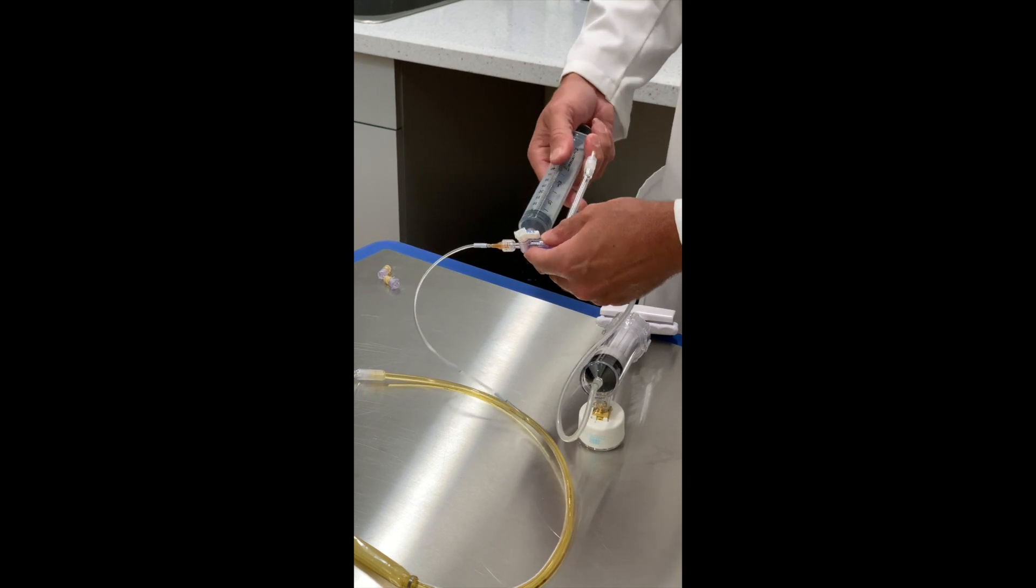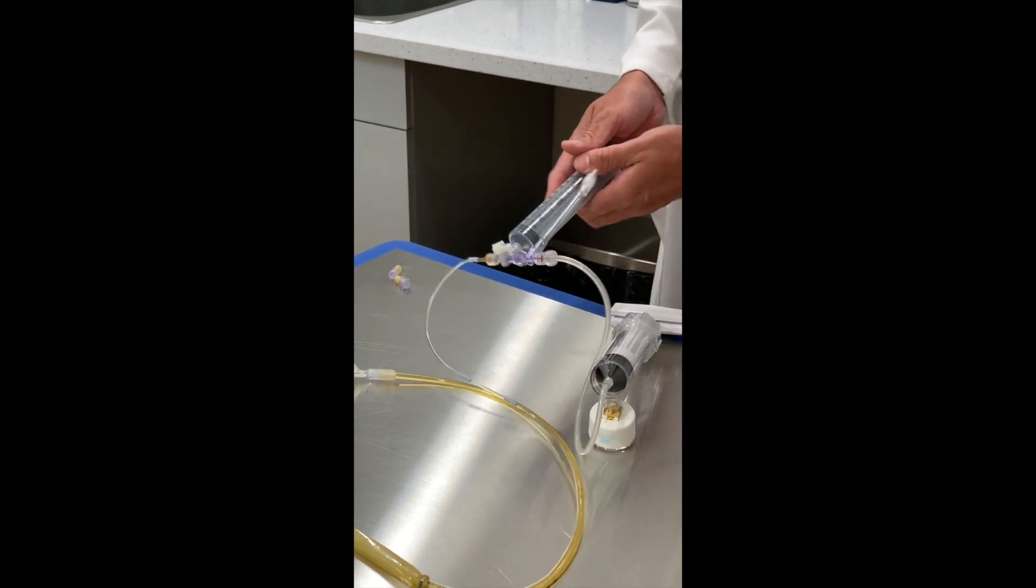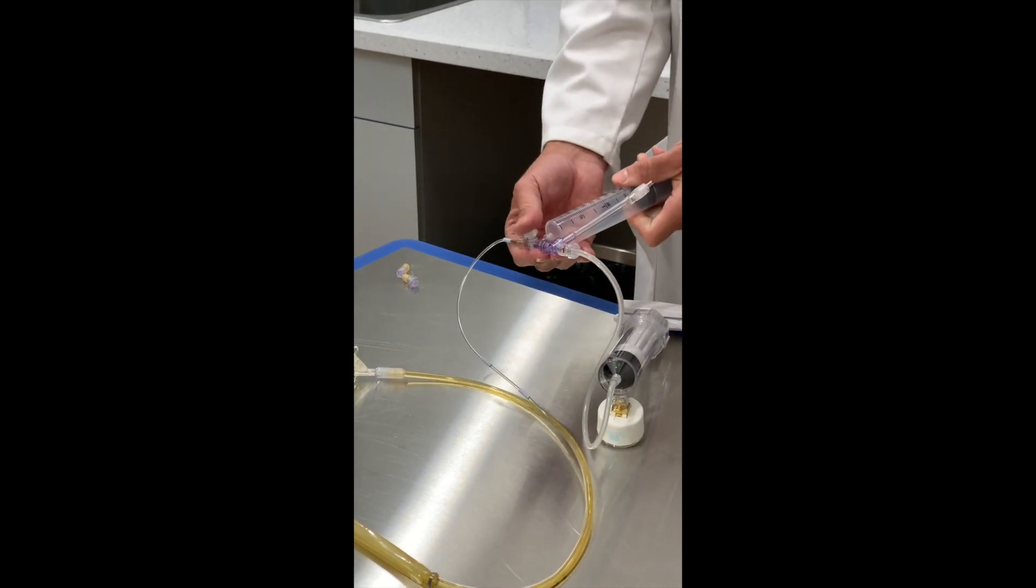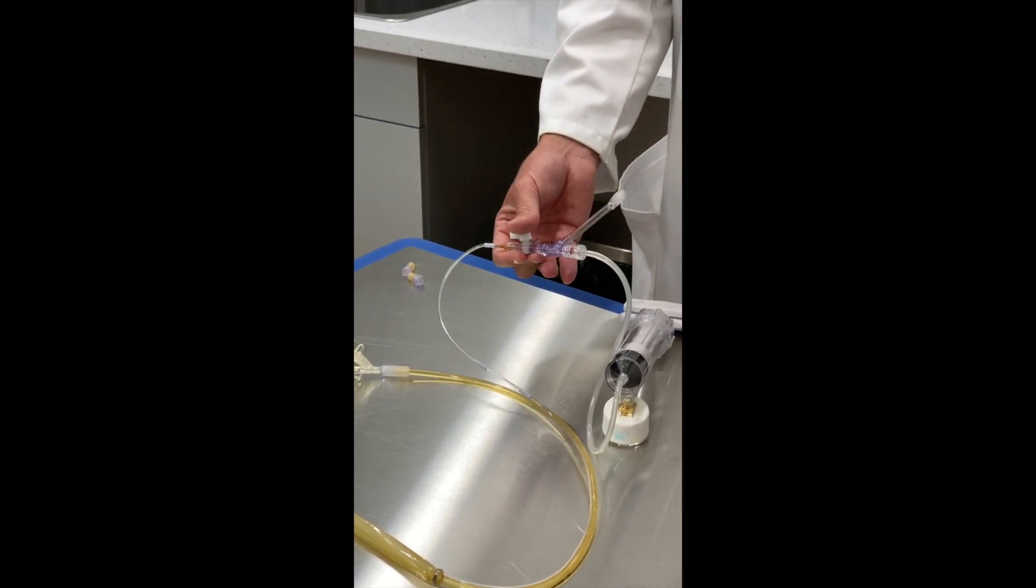We want to remove any excessive air in the balloon. So we pull back, turn off to patient. Now we're off to patient.